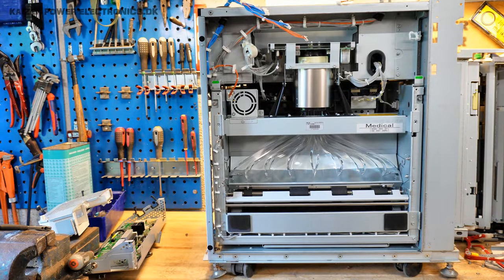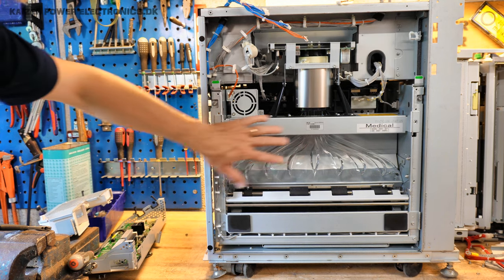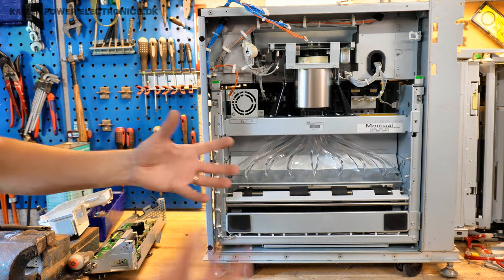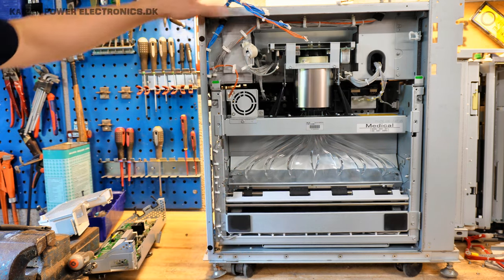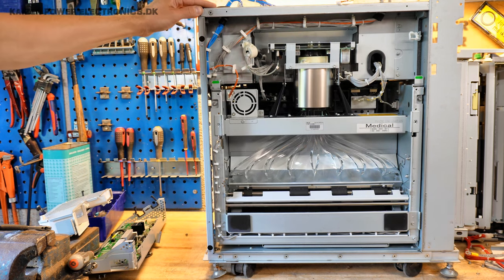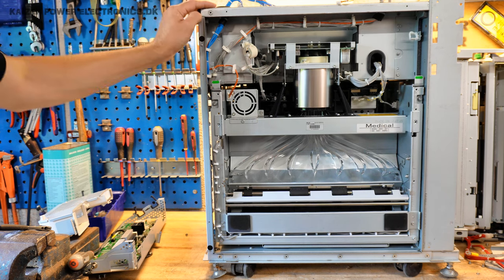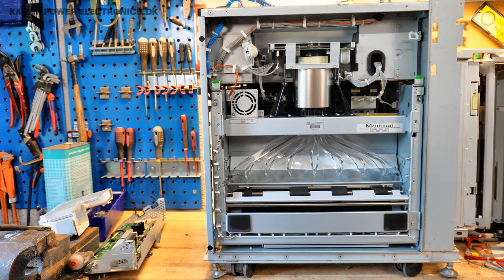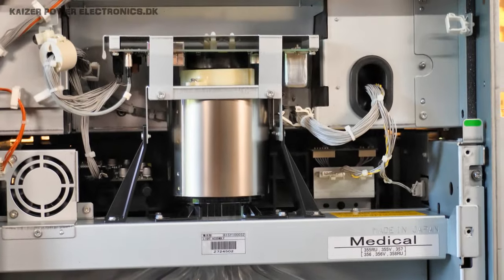Wow — it's one of those nice ones! One of those thermally formed plexiglass fiber optic light collectors, leading up to the PMT assembly up here. This is so lovely — medical-grade. The sticker says 'handle with gloves and don't scratch.' This is just awesome — look at that assembly. That is simply beautiful.